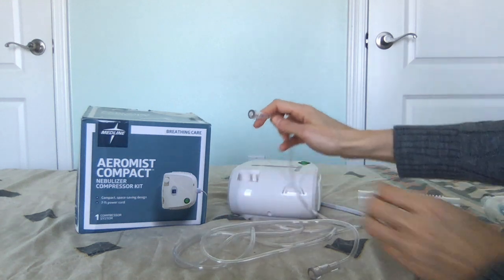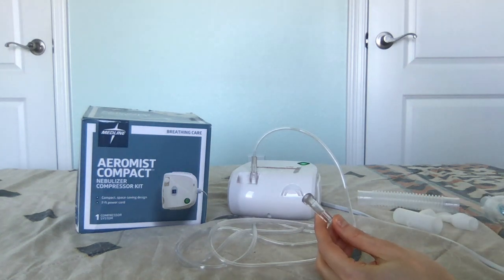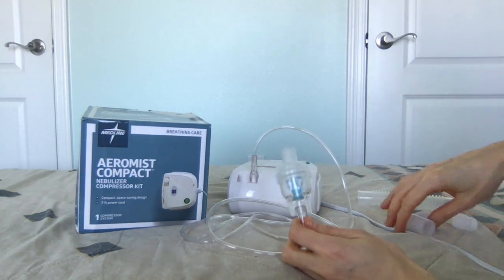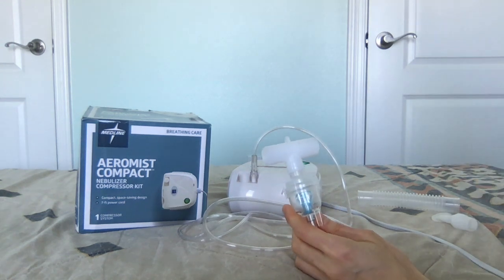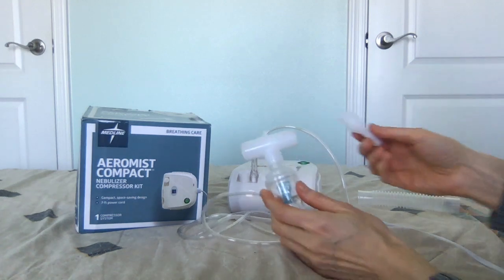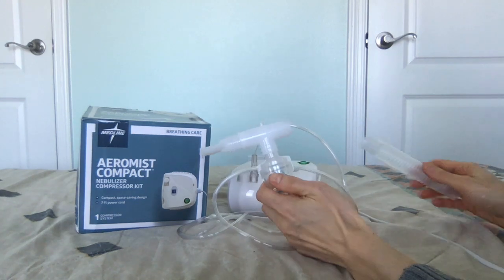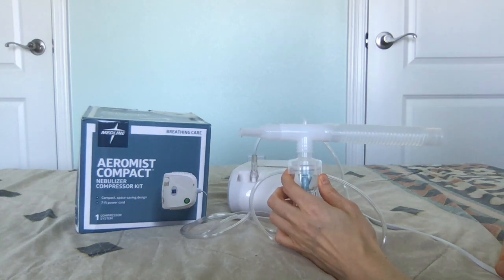To assemble the nebulizer, connect the plastic tubing to the compressor. Take the other end of the plastic tubing and connect it to the bottom of the nebulizer canister. Next, twist on the T-adapter. If you're going to be using the nebulizer orally, twist on the mouthpiece, then attach the reservoir tubing to the other side. Now it's assembled for use in the mouth.